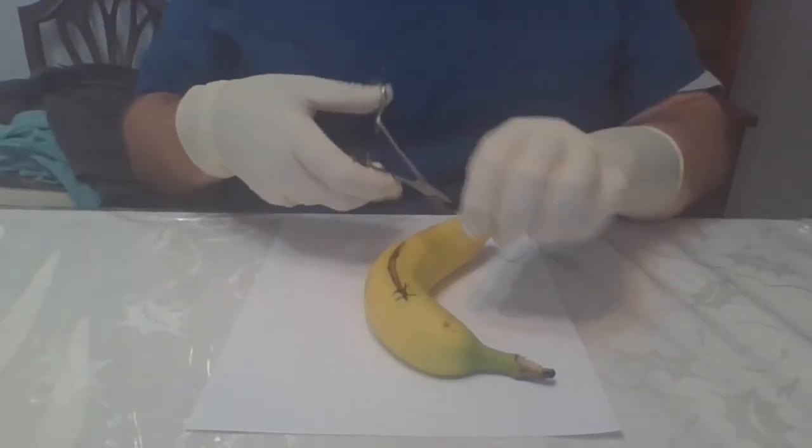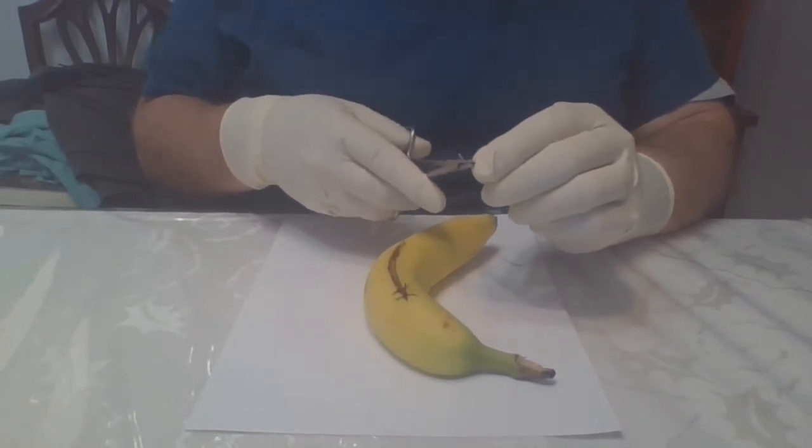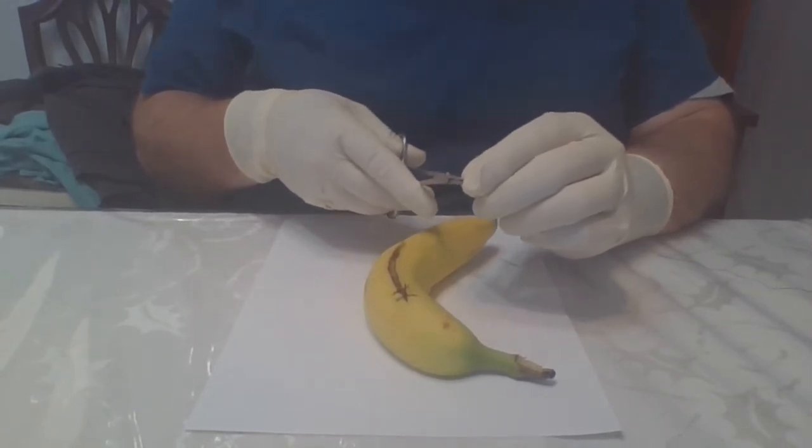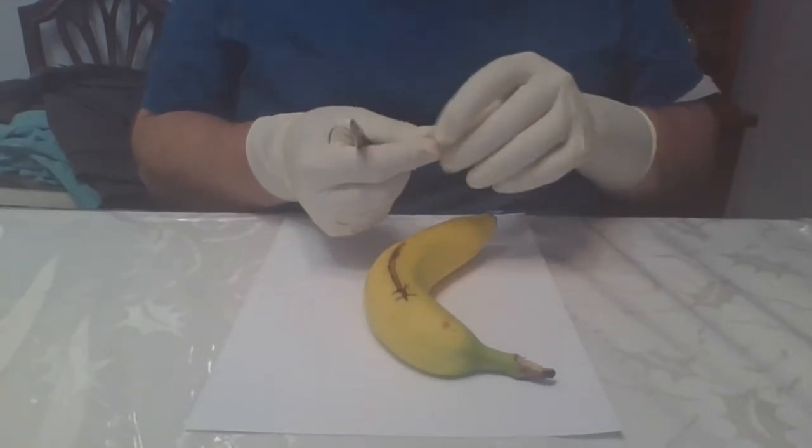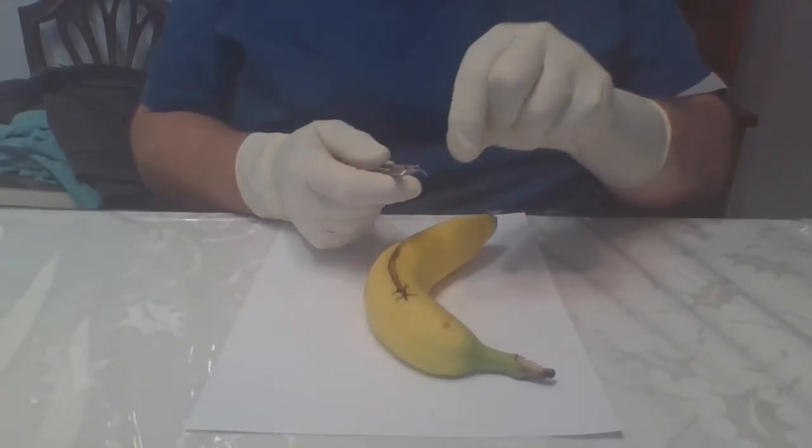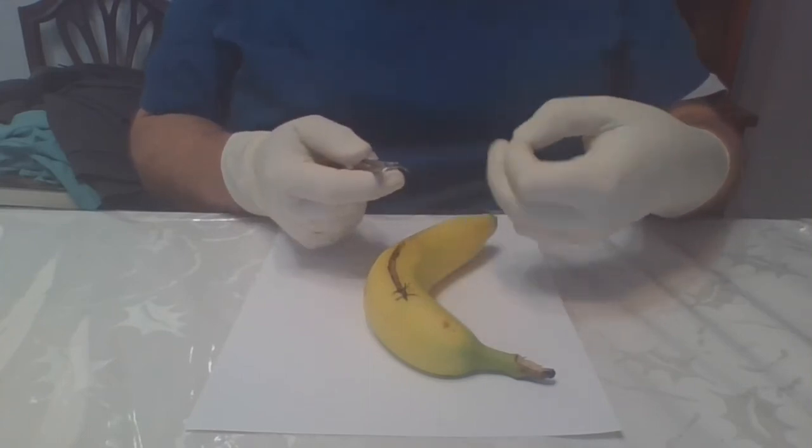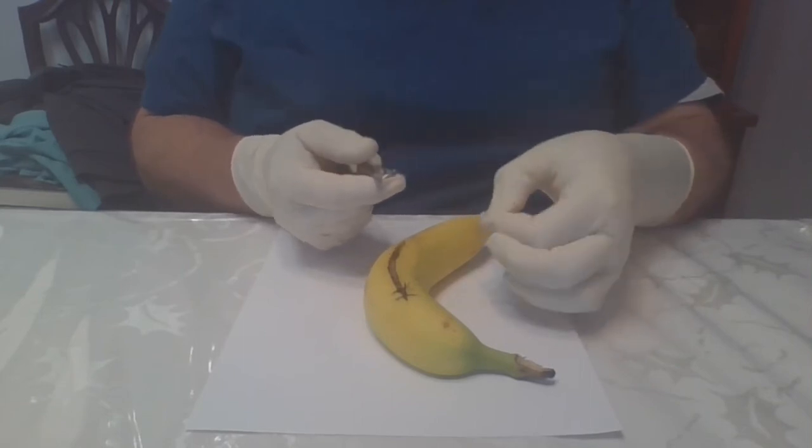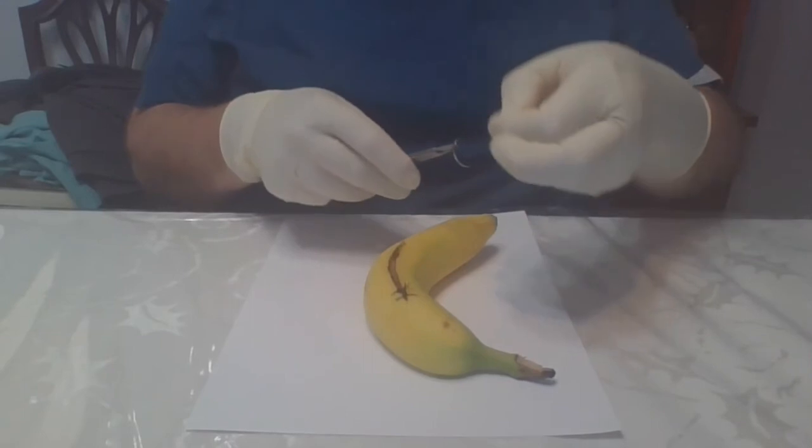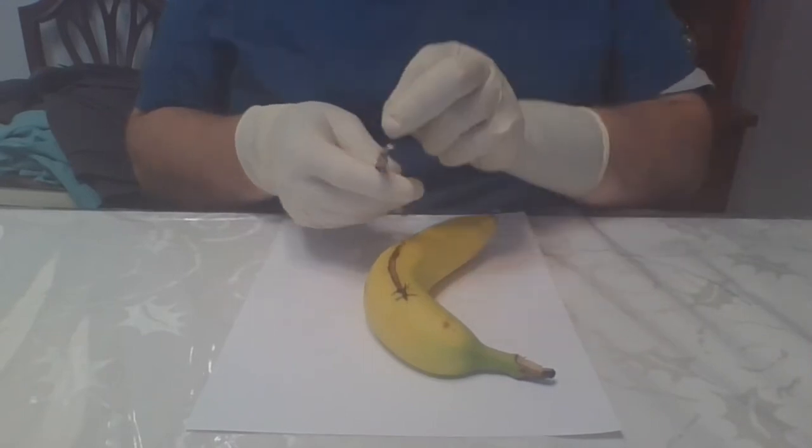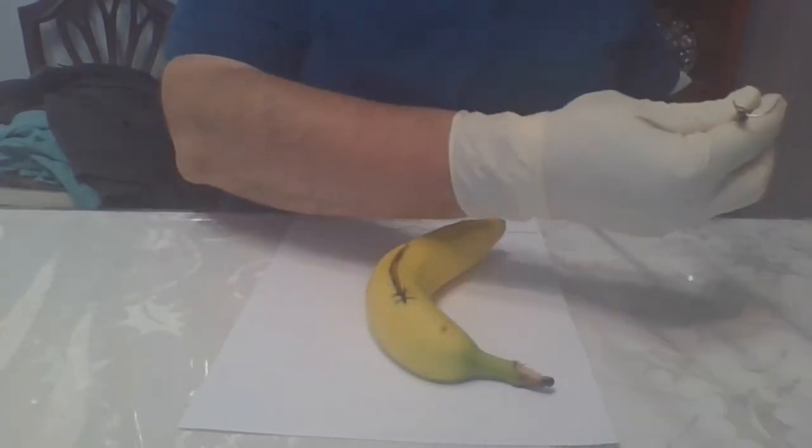All right, I'm out of pig's feet. I need to go get some more. All right, let's do it one more time. So reset the needle. Start with it in frowny face. Thread the tie through. Holding that firmly. Bring under. Behind and into the jaw. Hold it. And then pass it.